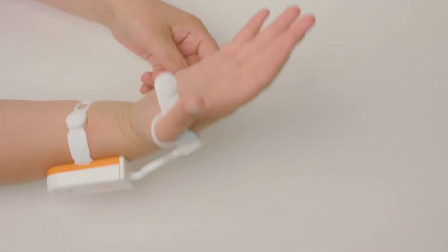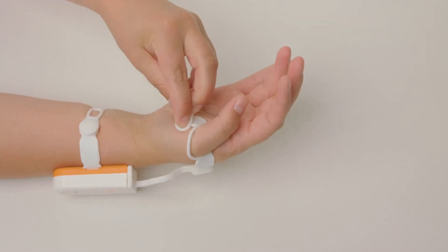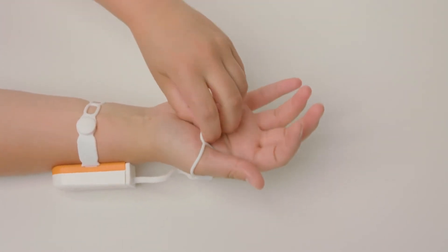Third, pull and connect the remaining strapping on the palm side of your hand for a snug and secure fit.